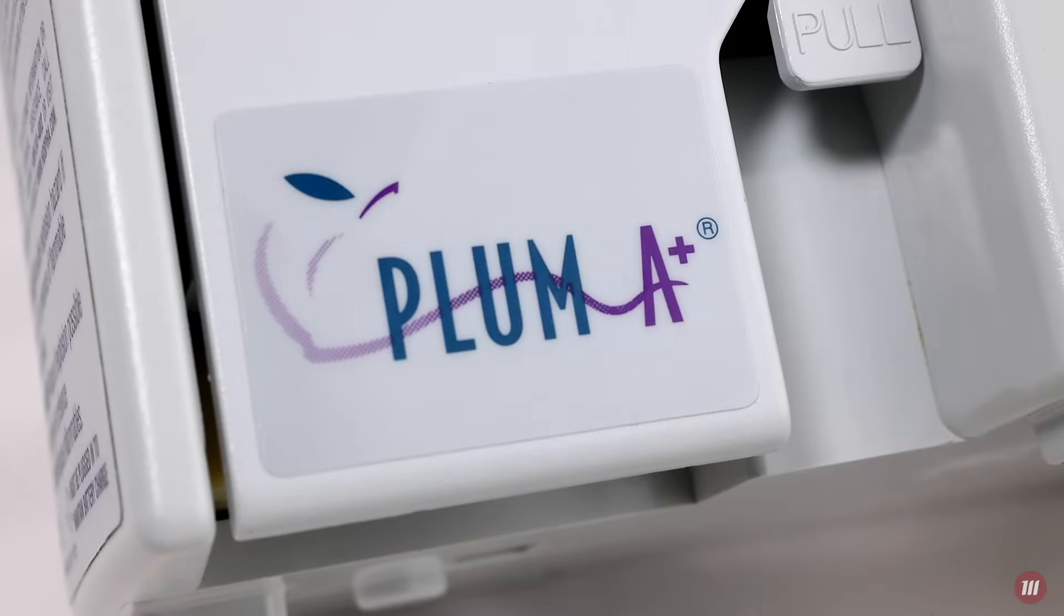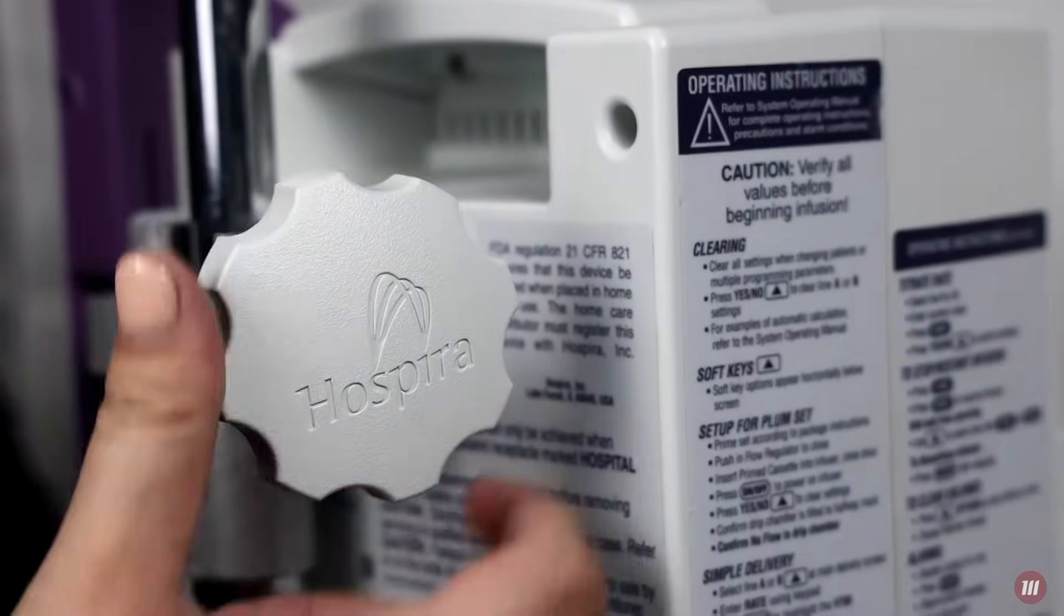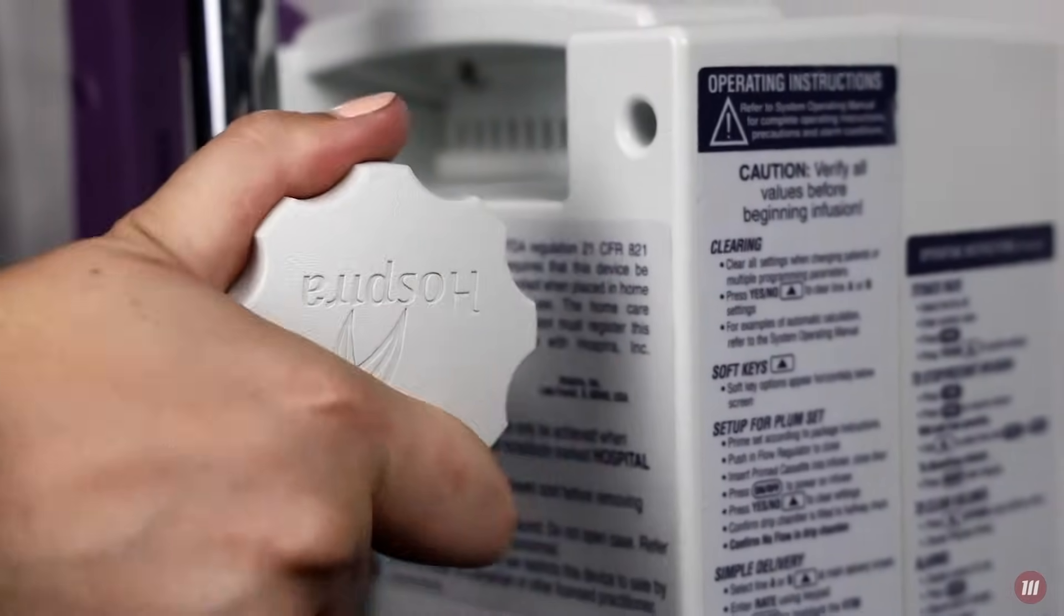The Hospira Plum A Plus is another popular IV pump used in hospitals. It is a single-channel pump used in the general floor, surgical unit, burn unit, pediatrics, and many other hospital settings.